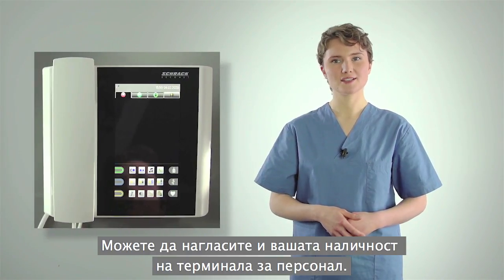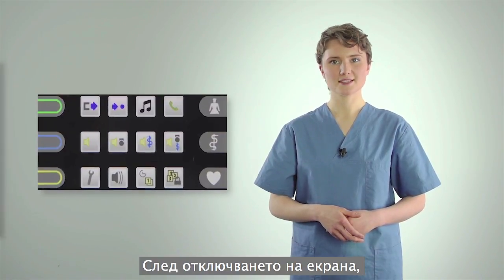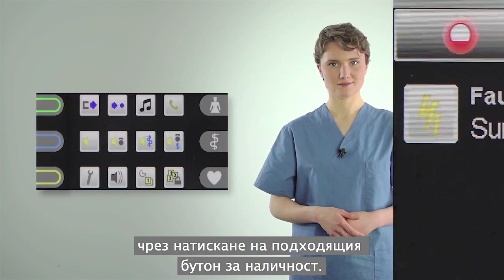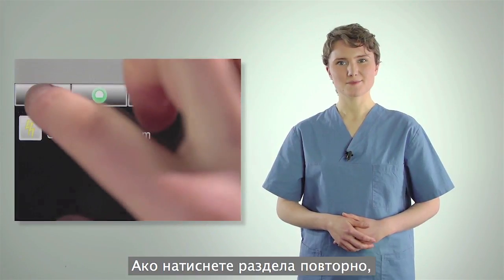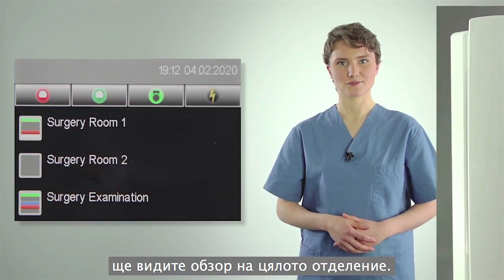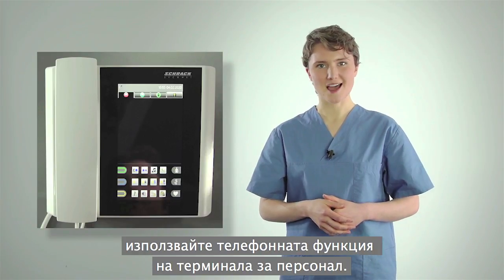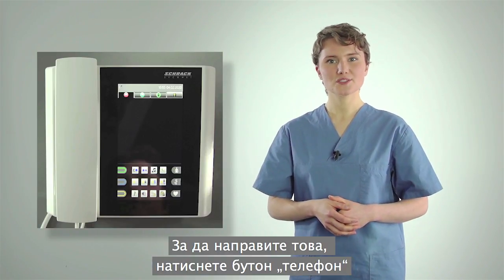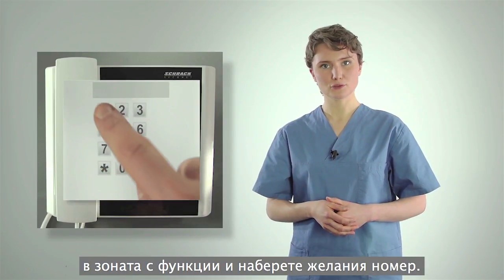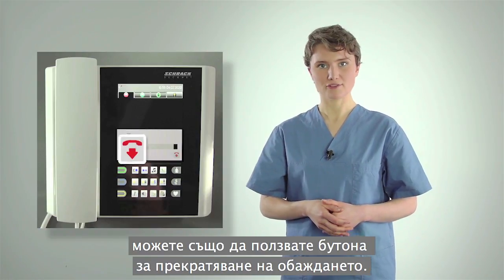You can also set your presence on the staff terminal. After unlocking the display, you can set your presence by pressing the appropriate presence button. If you press the tab a second time, you'll see an overview of the whole ward. To make a telephone call, use the staff terminal's telephone function. To do this, press the Telephone button in the Functions area and dial the required number. To end the call, you can also use the End Call button.